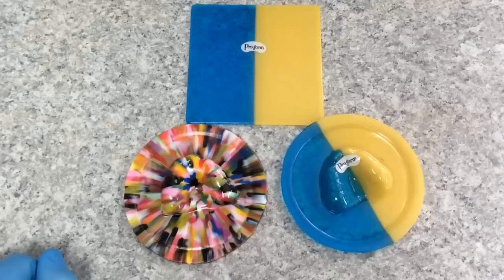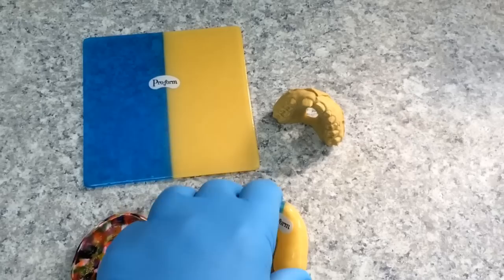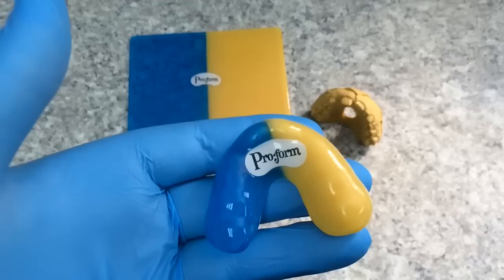So now what we've got to do is we've got to go and we've got to trim these up and actually make it look like a mouth guard. Okay, so here we have our finished mouth guards. They've all been trimmed and polished and we end up with the finished product.